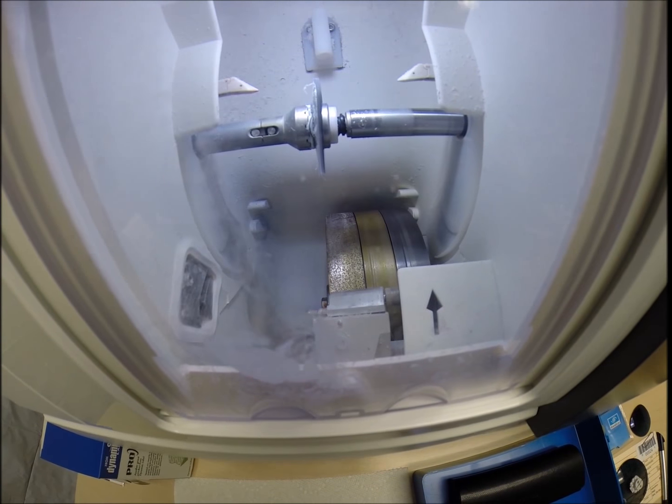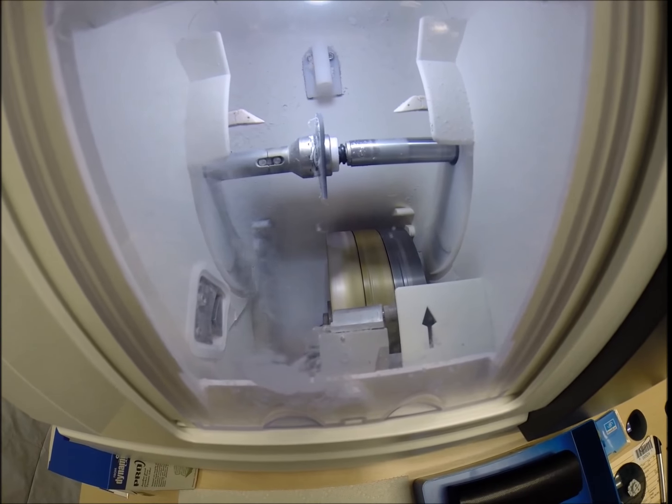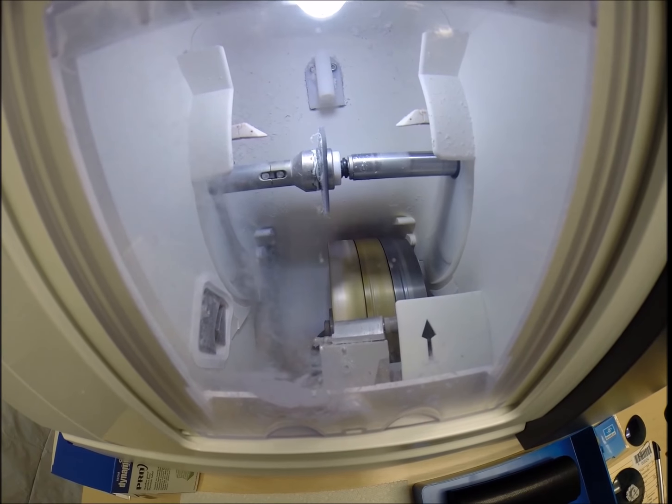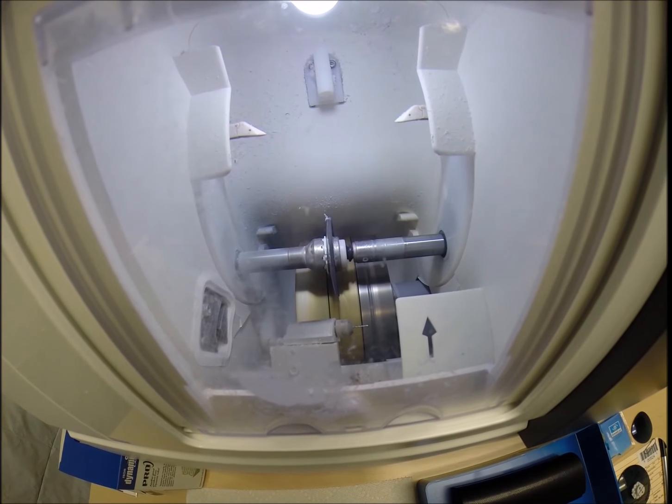So, if you notice, your lens is completely flat, just like a nickel. If I were to take it out now, it would stand up on the counter on its own. Now, it's going to move on to the bevel wheel to get the V-shaped bevel so it stays inside the bevel of the frame.